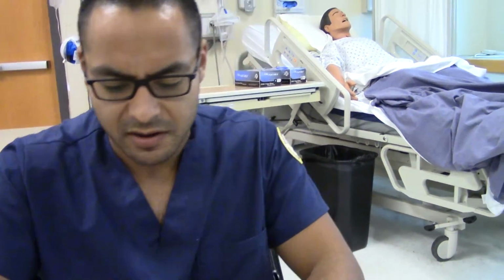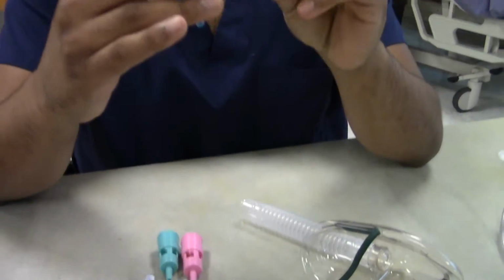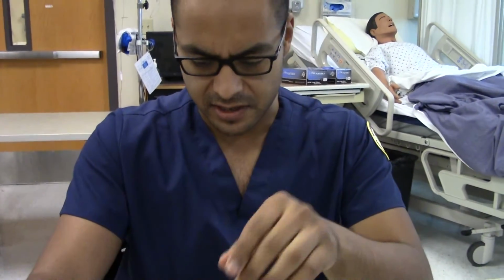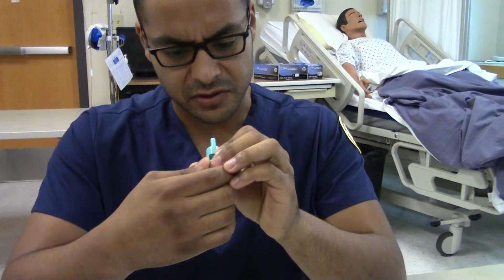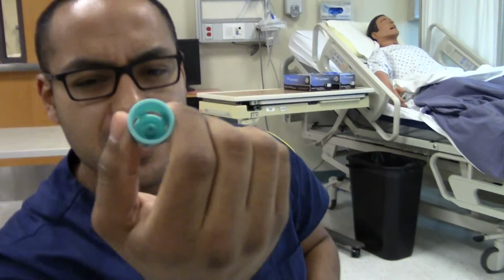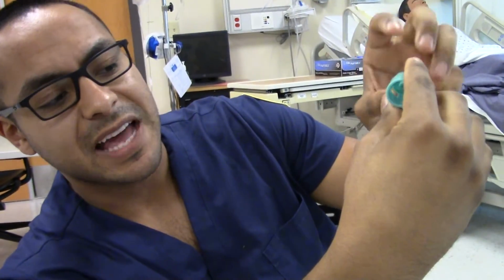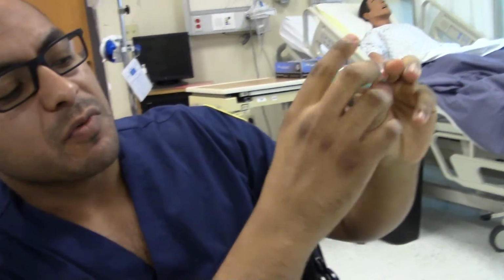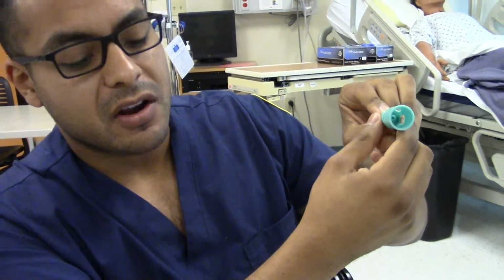Let's talk about these now real quick. These are amazing. Each one has its own variable. Let's do the big one here: 35% FiO2 at 8 liters. It has a little hole here. Bigger the hole, more oxygen, more FiO2. These capture all the atmospheric air, all the outside air. The reason why it's fixed is that oxygen in here gets propelled out, but the atmospheric air is so great.